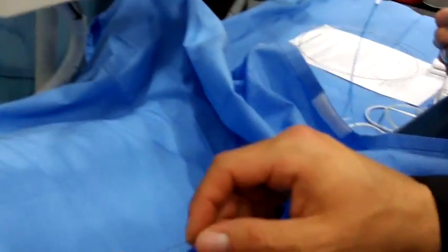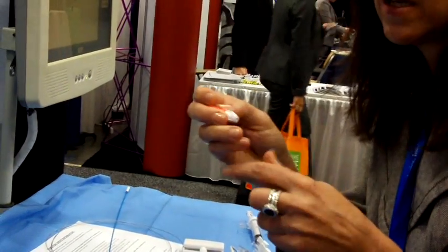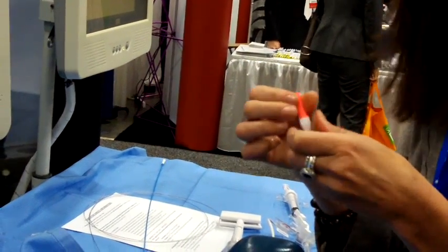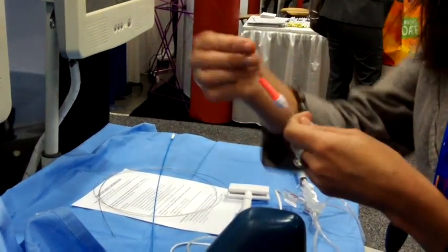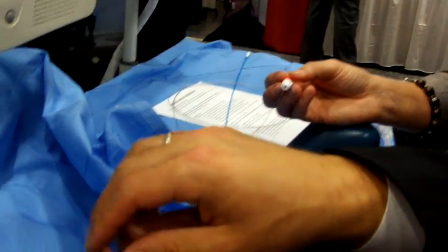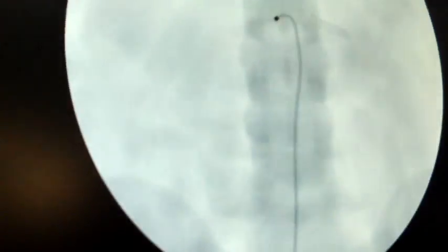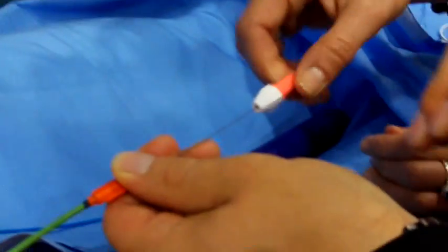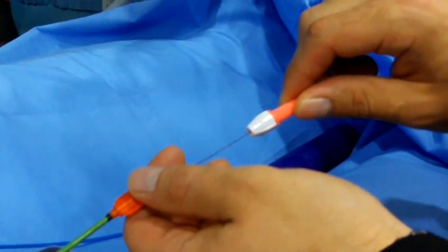This is the most intriguing part. We're going to put this little wire inside the catheter — this is a representation of the wire that would be going through into that artery. You won't see it until you feel the machine grab it. The ideology here is we go through the large arteries just by hand without steering, and then when we need to go through the small arteries we use this steering line. This is a small wire that we can navigate wherever we want. I'll put this little device on the end of it — because imagine the doctor has blood and saline on their hands plus gloves, it's hard to grab and steer it. Keep pushing the wire until we see it come out the end of that catheter. I'll give this to you to clamp on, which allows you to turn the wire. If you feel resistance, back up the wire a little bit, turn it differently, and then try advancing it again.